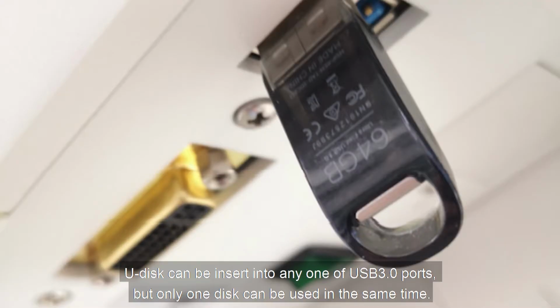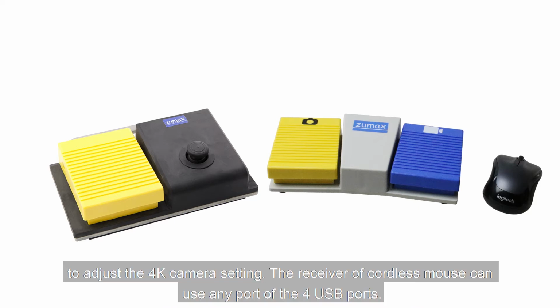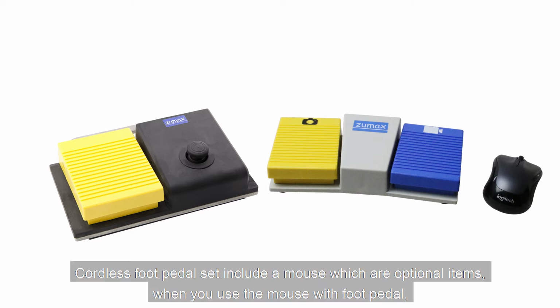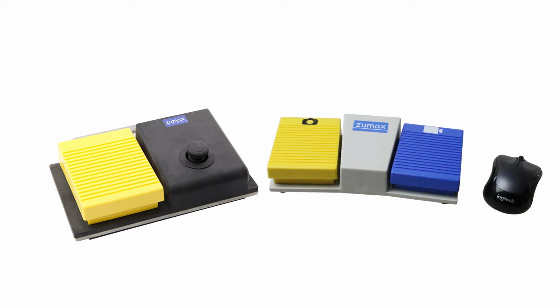A U-Disc can be inserted into any one of the USB 3.0 ports, but only one disc can be used at the same time. Use a cordless mouse, which is a standard configuration, to adjust the 4K camera settings. The receiver of the cordless mouse can use any port of the 4 USB ports. A cordless foot pedal set including a mouse is optional. When you use the mouse with the foot pedal, please give up the default mouse that comes with the microscope.